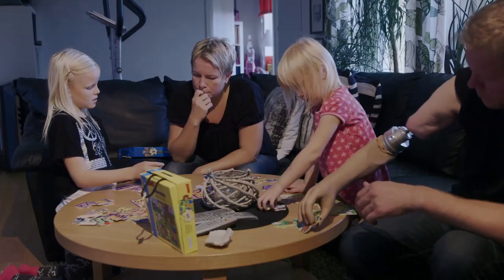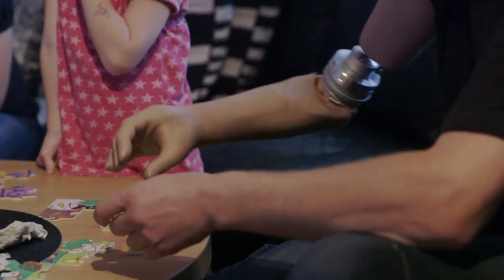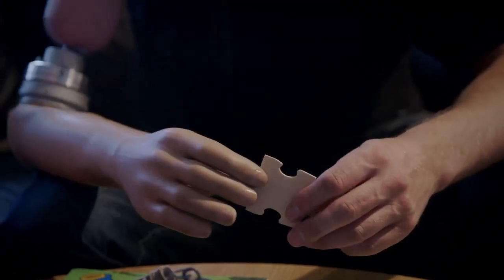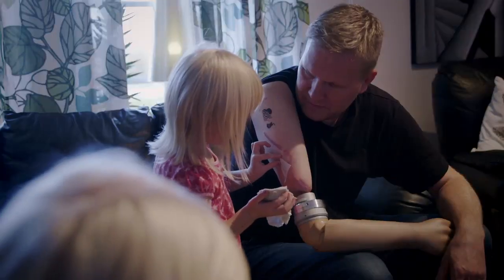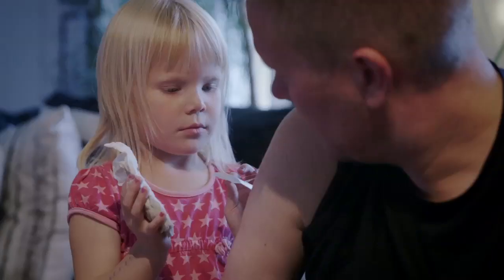With this arm, I can work with almost everything. It's not feeling like a machine. It's more like my own arm. In the family life, I don't feel handicapped.